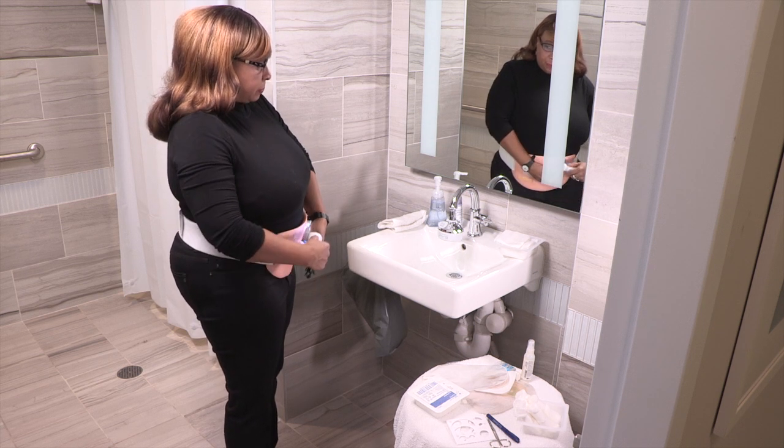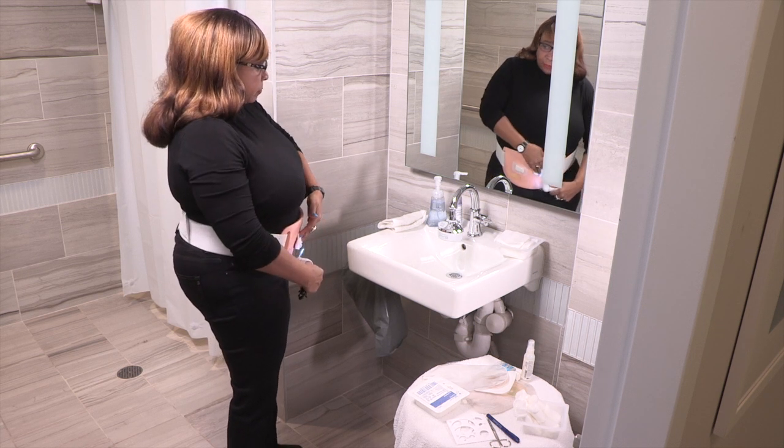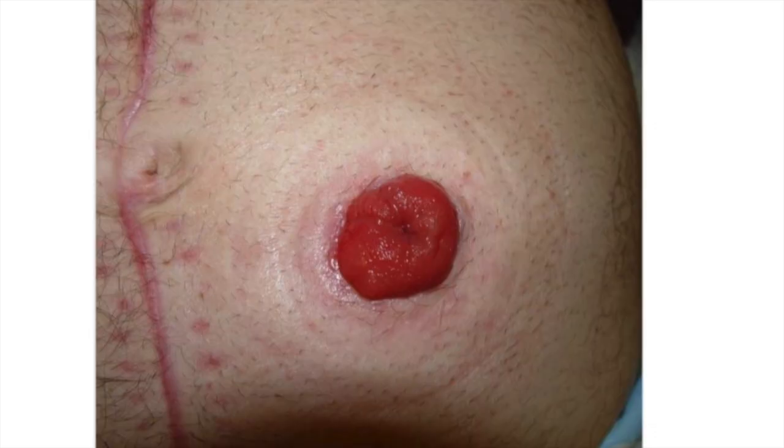While you're doing this, look at the color of your stoma and the skin around it. Your stoma should be red or pinkish red, like the color inside your mouth. If it's any other color — like brown, gray, or black — take a picture and send it to your doctor using your My MSK account, and call your doctor after you finish changing your pouching system.